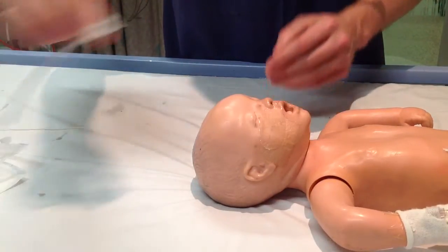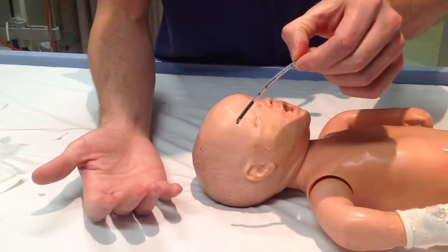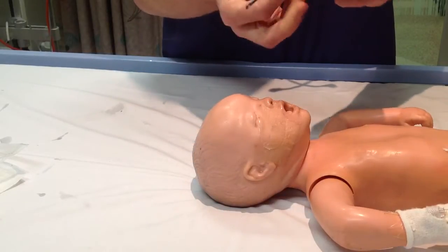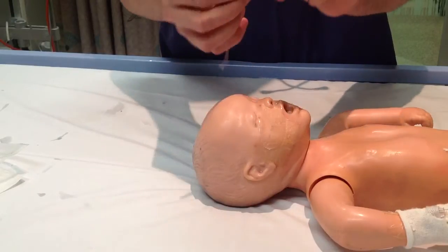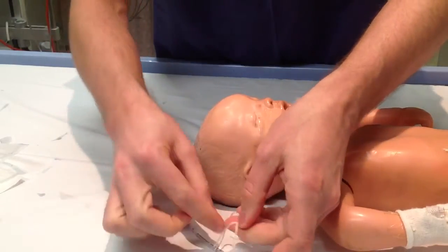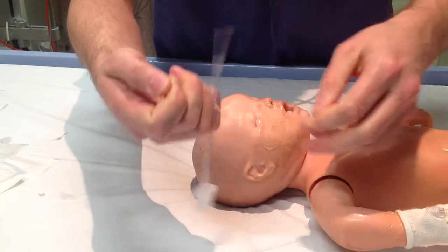The first step is measuring the airway device and the length. Like any nasopharyngeal airway, measure from the tragus to the nostril — in this case, it's about eight centimetres. At eight centimetres, tie a very firm knot and mark that length. It's very important to get that knot tight, otherwise the tube will migrate in and out.